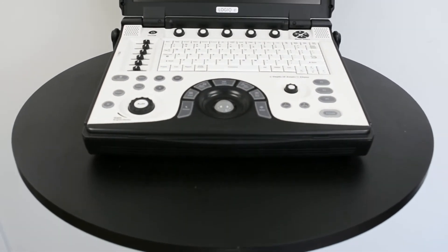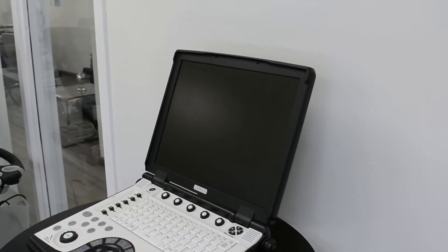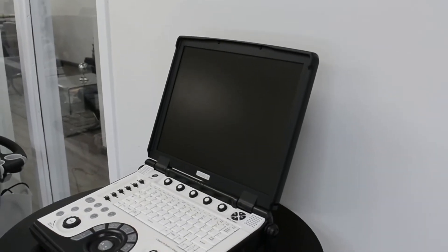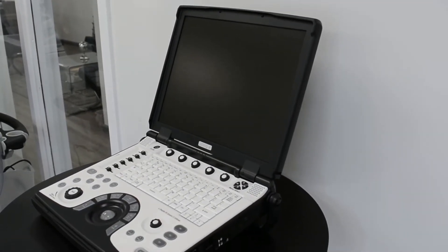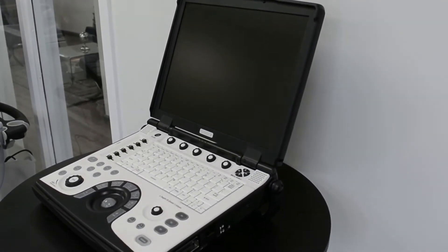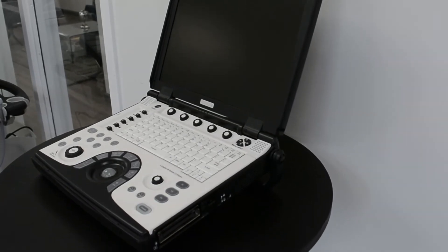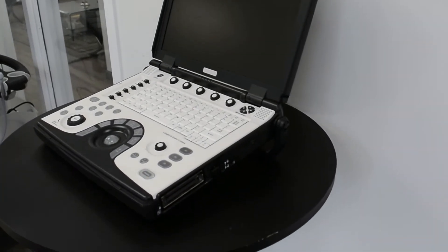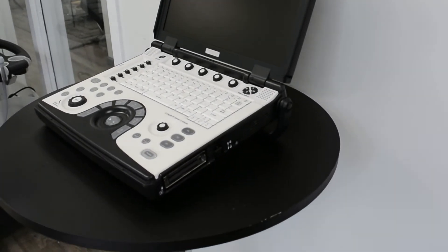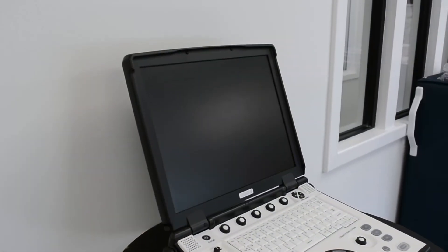The system has the ability to customize the display to only show the functions you need. The GE Logic-E features the ability to manually or automatically optimize your images through anatomy-specific image settings to help provide improved image quality.